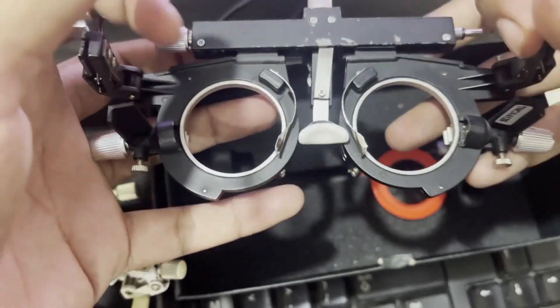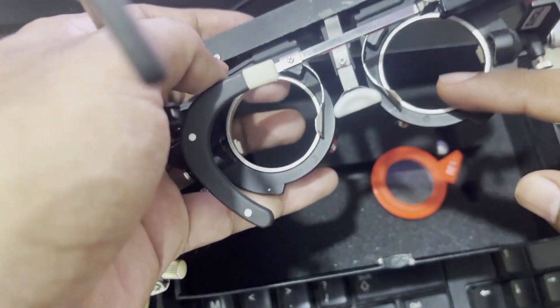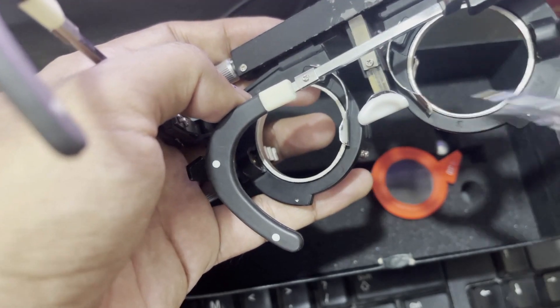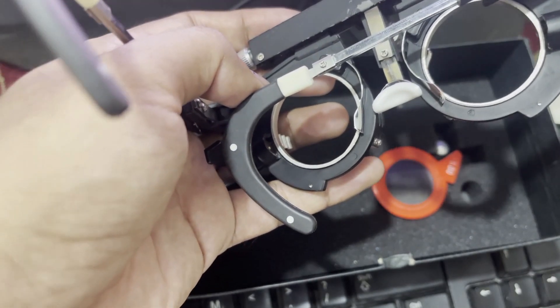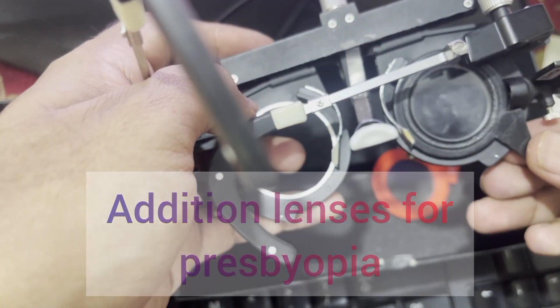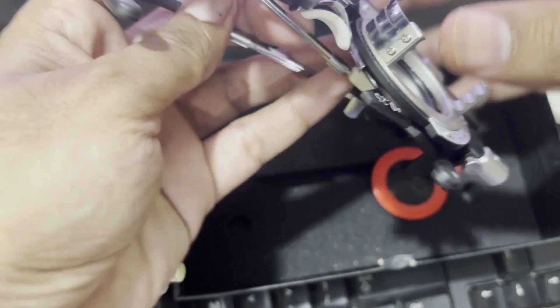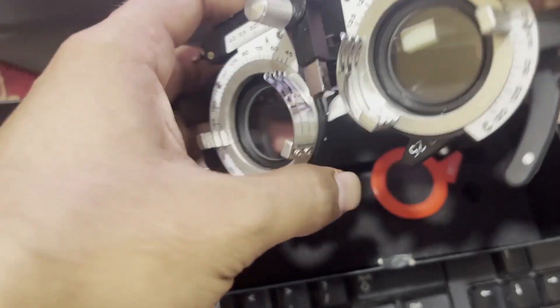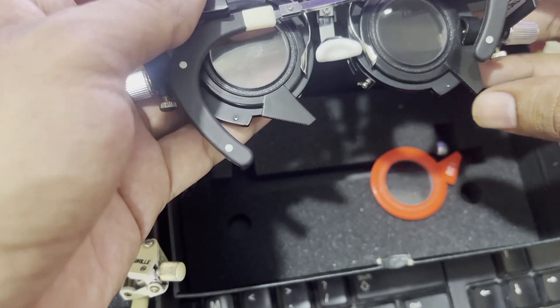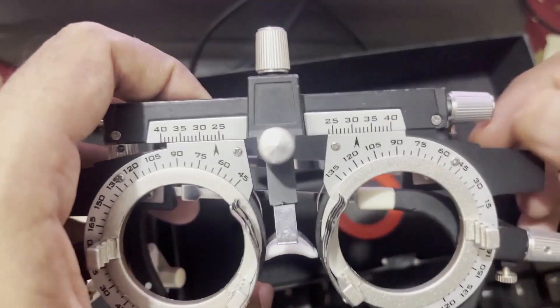Besides these three compartments, there are additional compartments on the back side of the frame — and this is very important. These back compartments are for addition lenses for presbyopic patients. We put spherical lenses, cylindrical lenses, and accessories in the three front compartments, but the addition lenses for presbyopic patients go in the back side compartments.